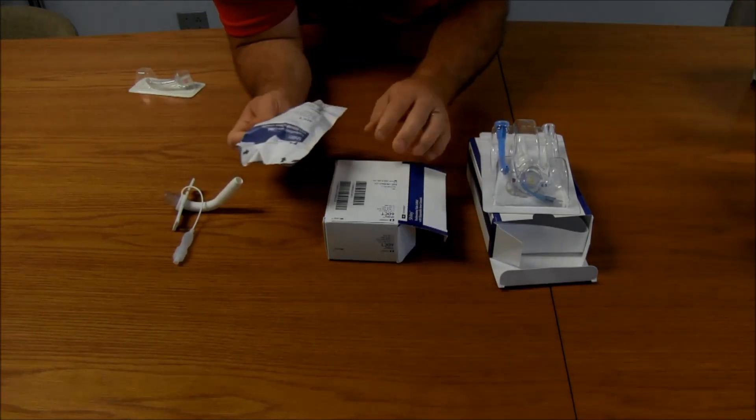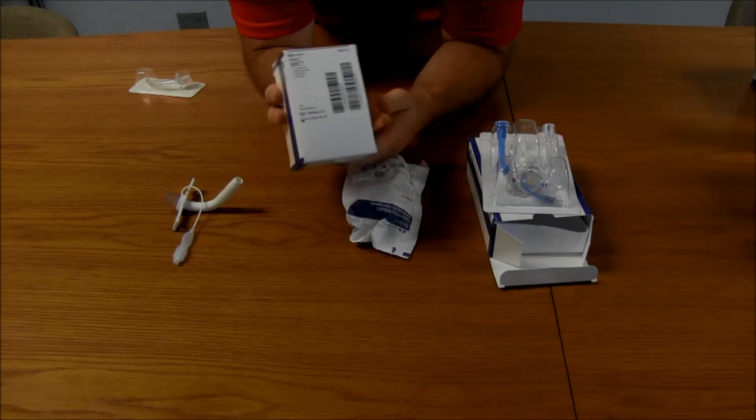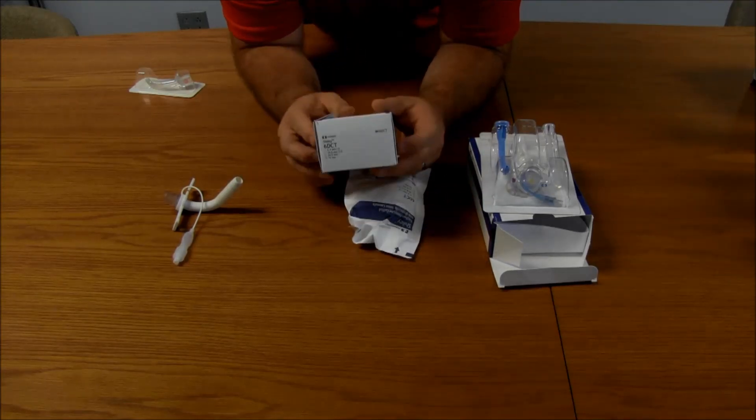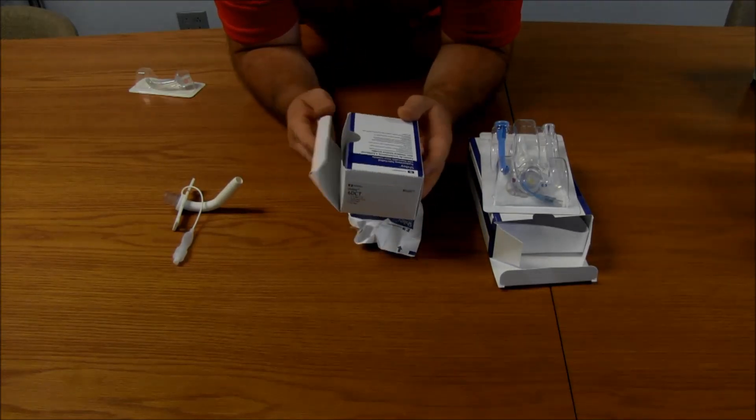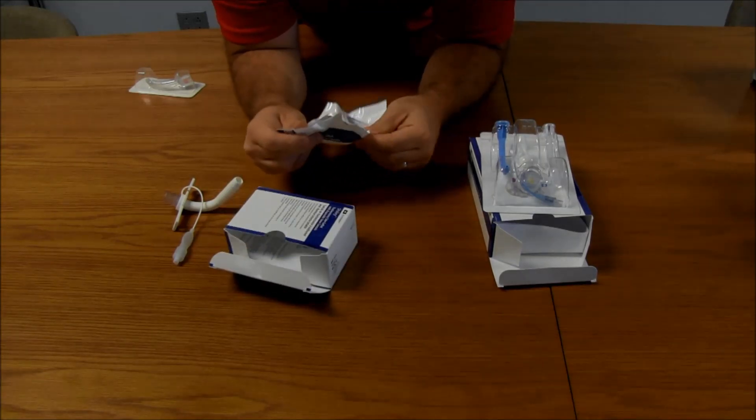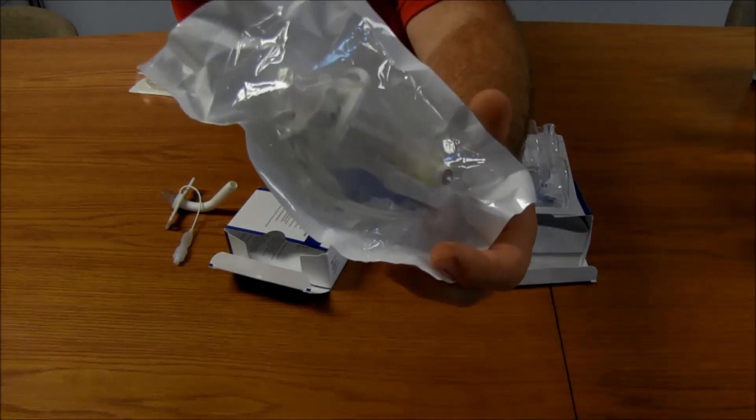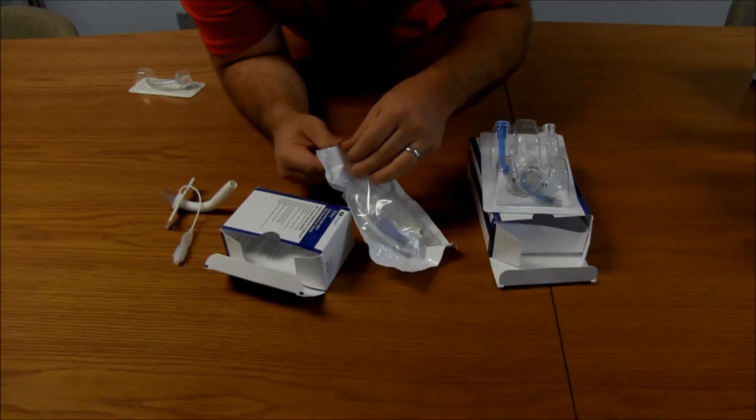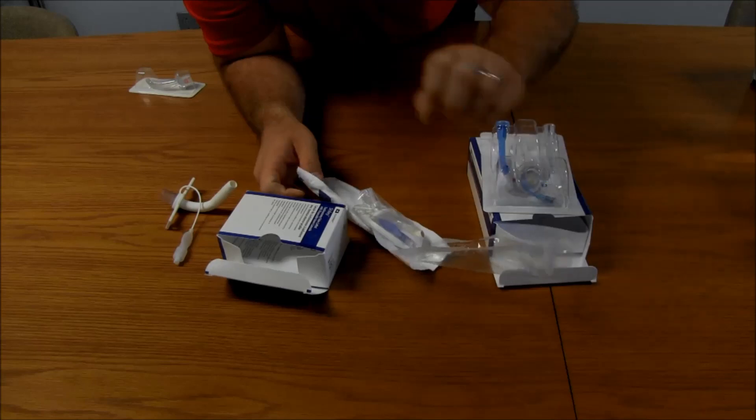Next one we're going to look at is our standard Shiley. This is the Shiley 6 DCT, but this is more of the standard Shiley that almost everybody is used to. This is a 6.0. Comes in a package about like that. Open it up.